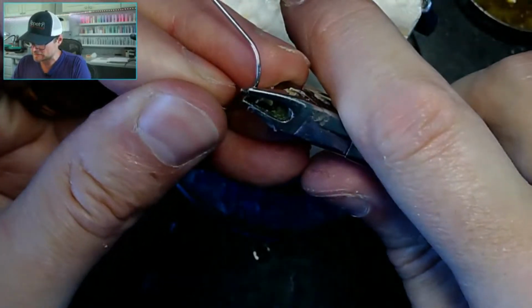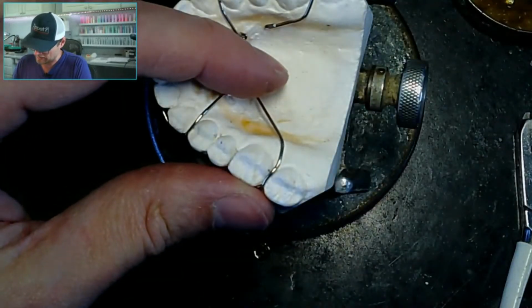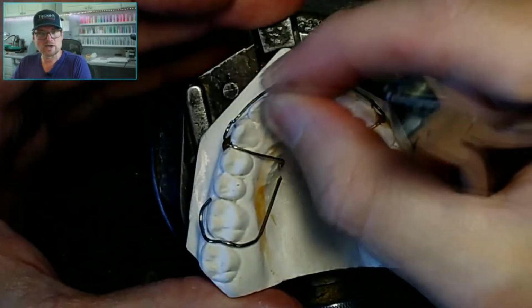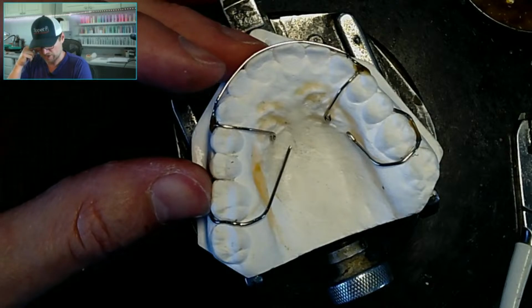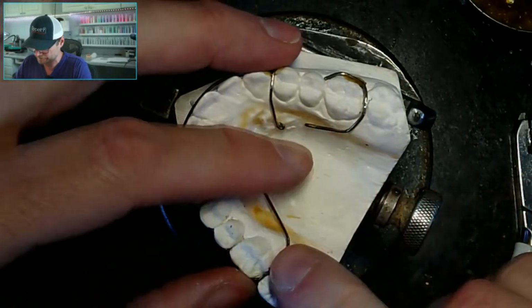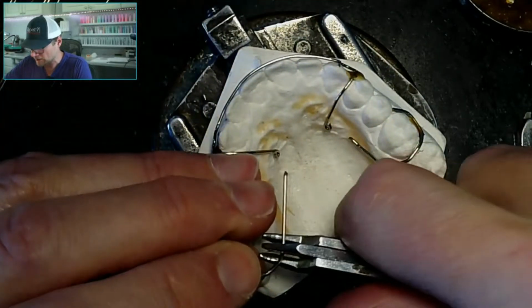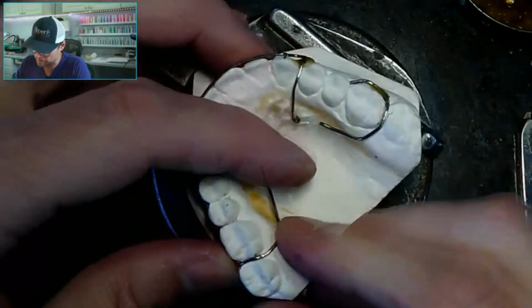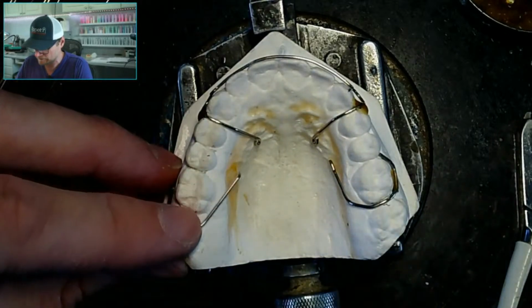Hey, Dental Things, I got a question from a dentist, and she was asking, hey, I'm getting skinny teeth in my pour-ups. What is the first thing you think of when the teeth are razor thin? My thought was they're pulling the impression too soon, but you'd get drag marks and distortions, or the alginate is just bad. She said the last one we did, the alginate material was a little runny, but I don't think that had anything to do with it. I always use the measuring cups that come with it, one cup powder, one cup water, so I get the right mixture.